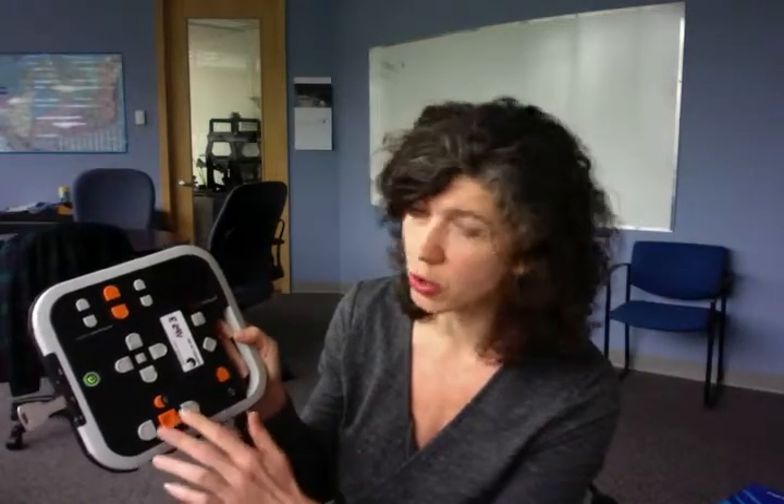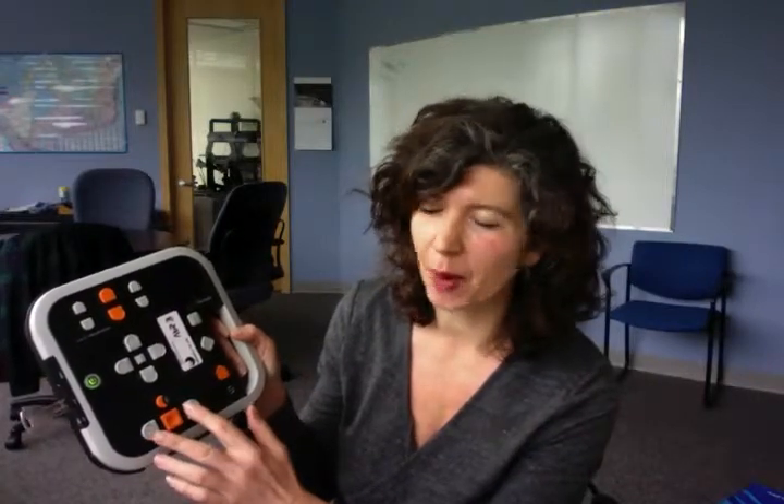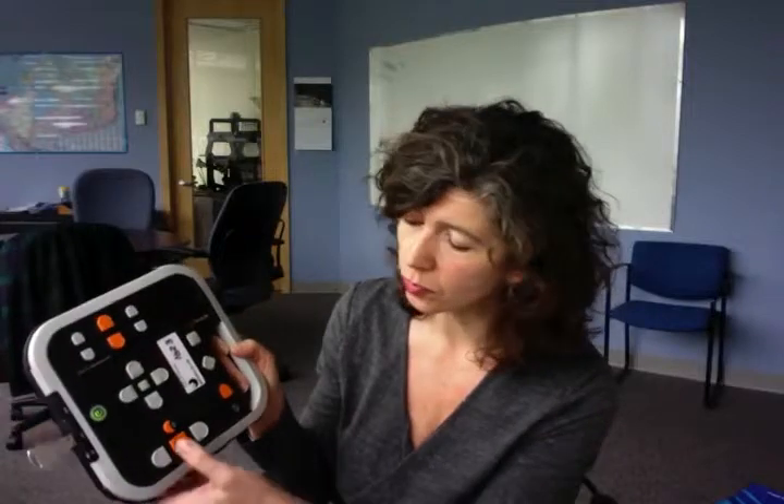If I want to start playing, as soon as it's on the title I want, I'll just switch down to my regular play, pause, fast forward, and rewind buttons and it'll start playing that book. At any time I can choose to change the books on my bookshelf by returning to that button and navigating through the different choices available on the USB.